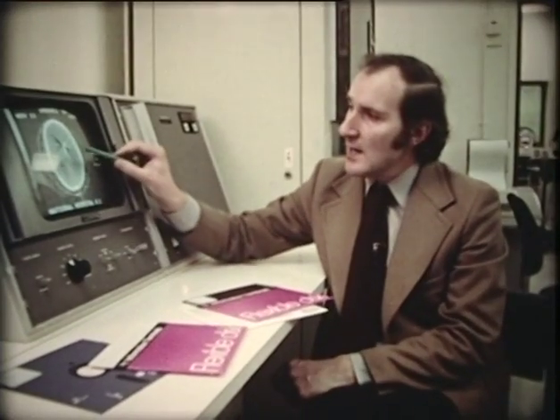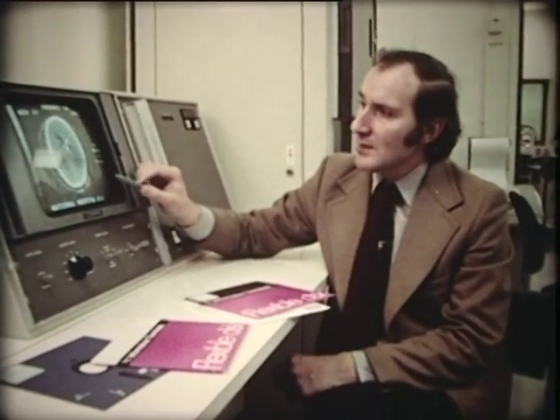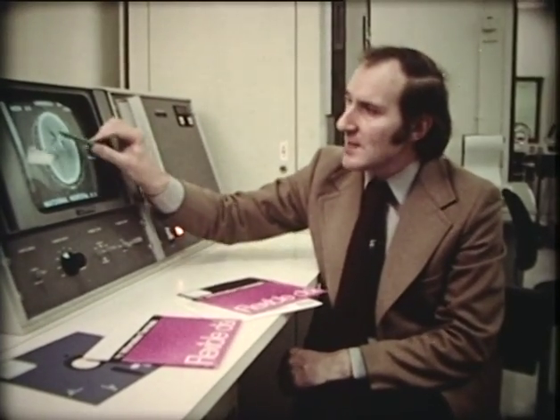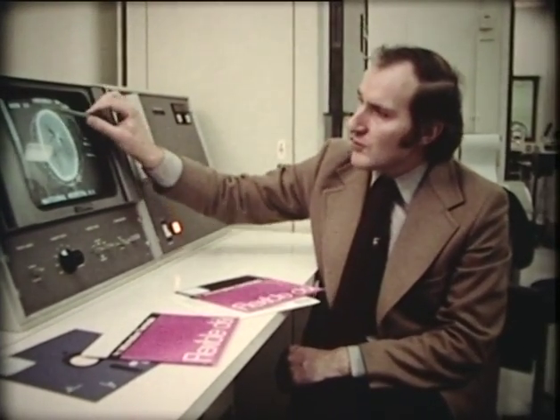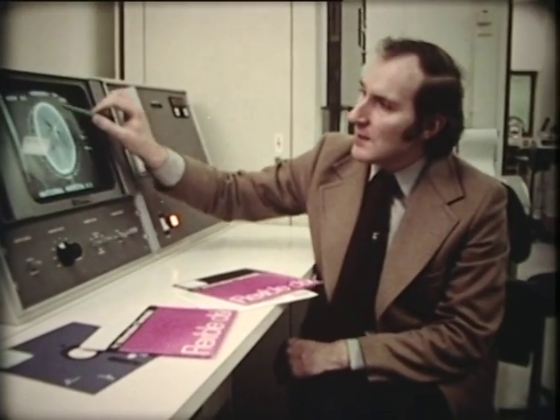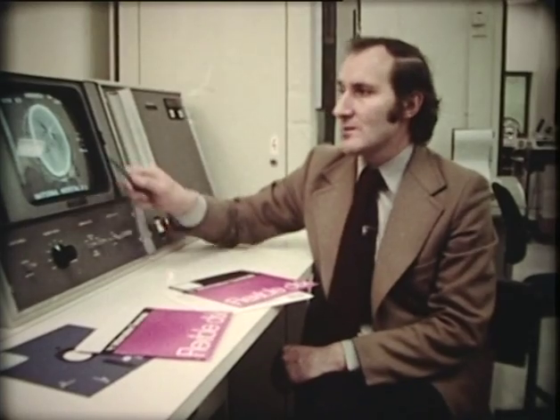This is because the bullet, which is very dense — it's made of lead — produces artifacts in the computer. It's as though the computer can't believe that the bullet is as dense as it really is, and so it attributes some of its density to the surrounding brain, producing this effect that looks rather like the moment of impact of the bullet upon the brain.